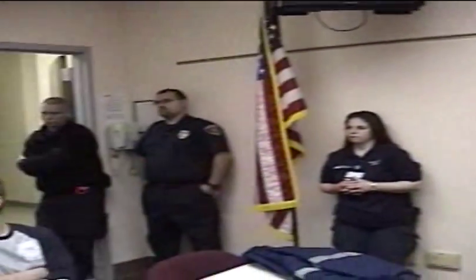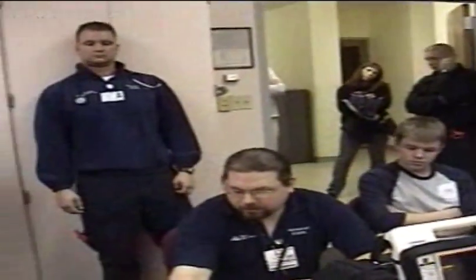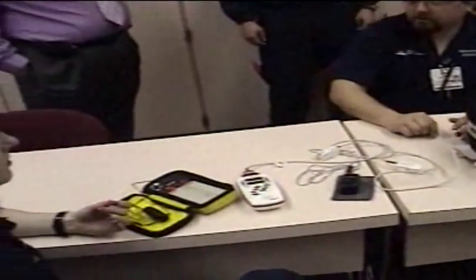There was only one device that had any difference in it — especially with the black. It took a little bit of a delay, and it did read lower with the black when Cody had it on. But eventually it started to come up a little bit. At the same time, it's still lower than what his control was.